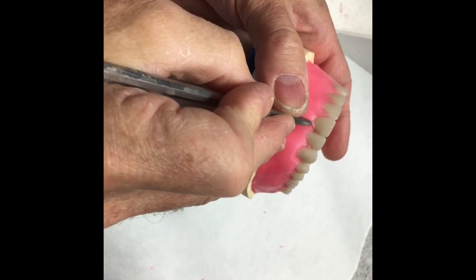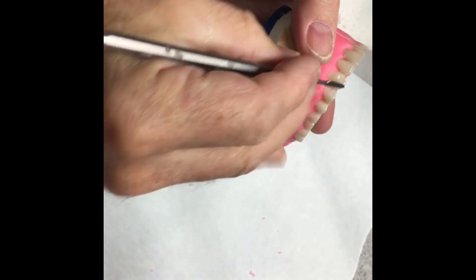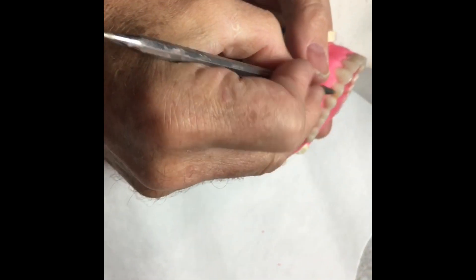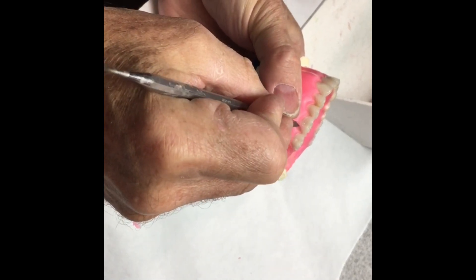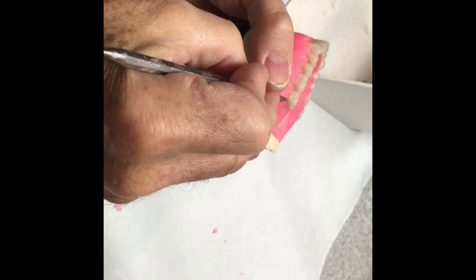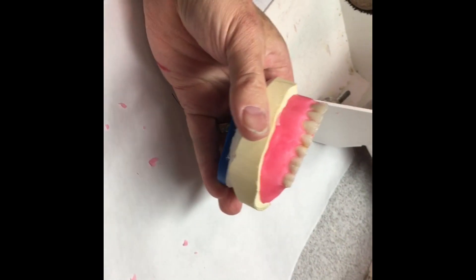I want to come at it from down here, which is going to be a little awkward at first. The tendency is to come at it from the occlusal. You can expose some, and if you think you're not fully exposed — if you don't have the facial of the denture tooth exposed — then carve a little more. Part of this is dependent on the size and length of the denture teeth and the mold that you've selected.